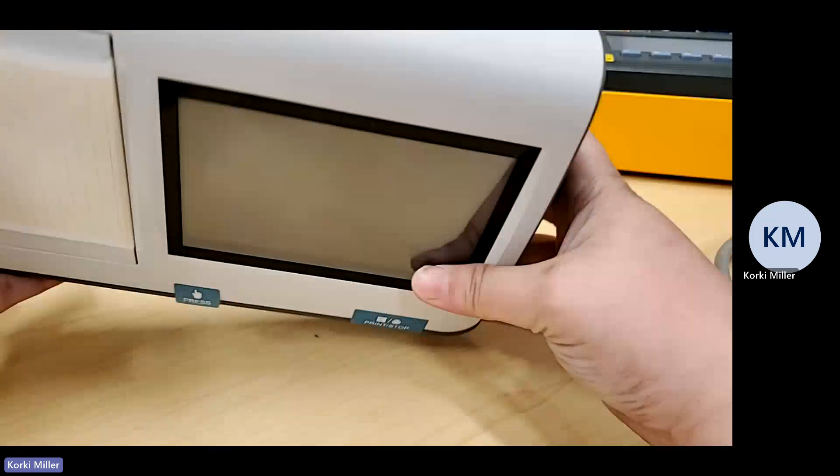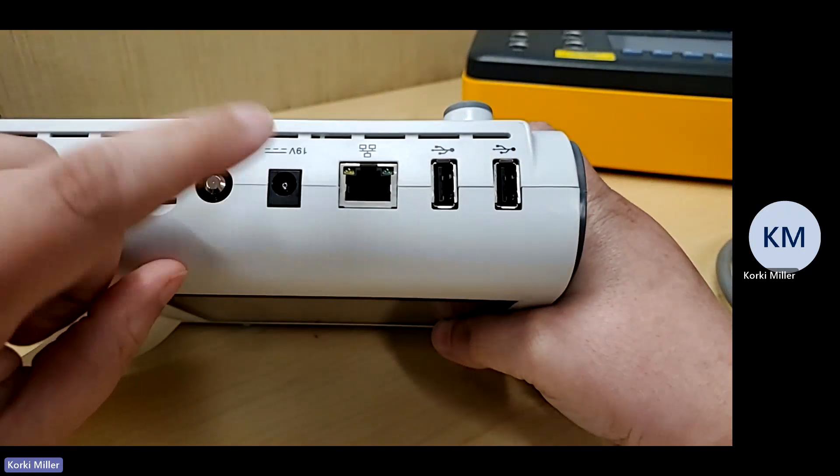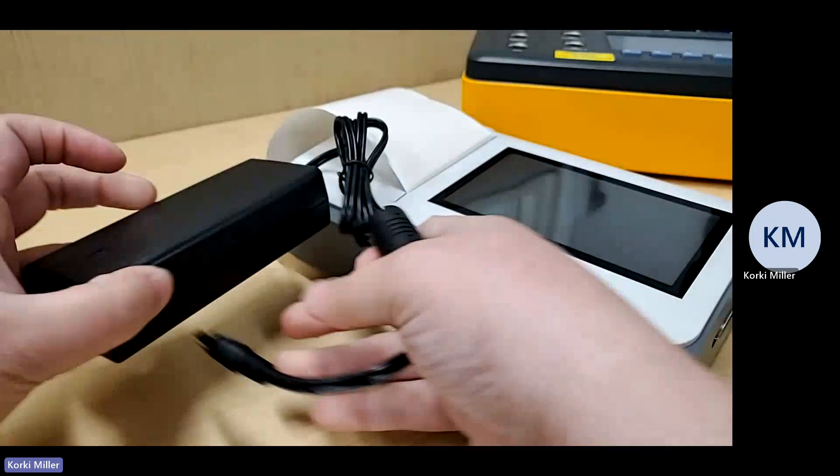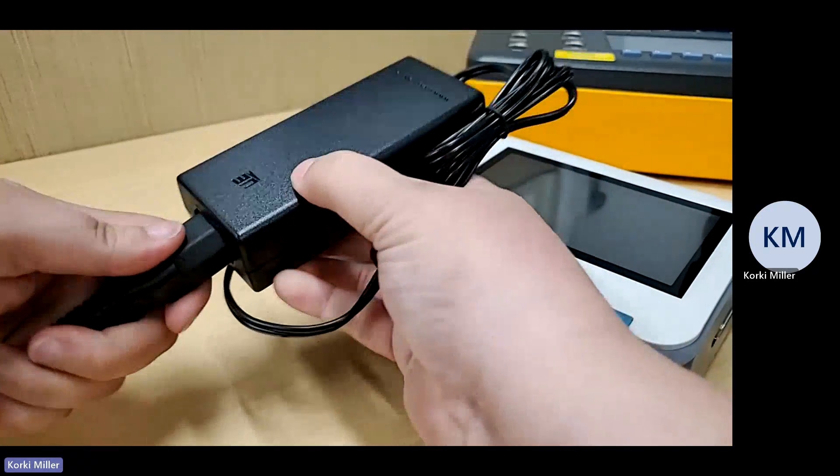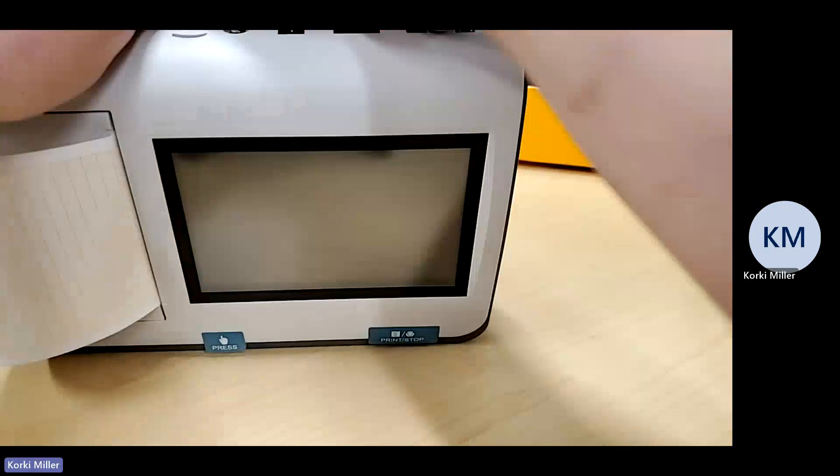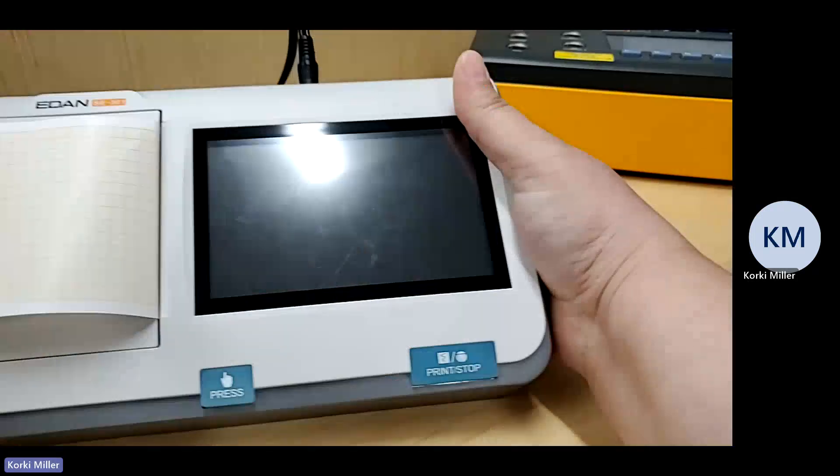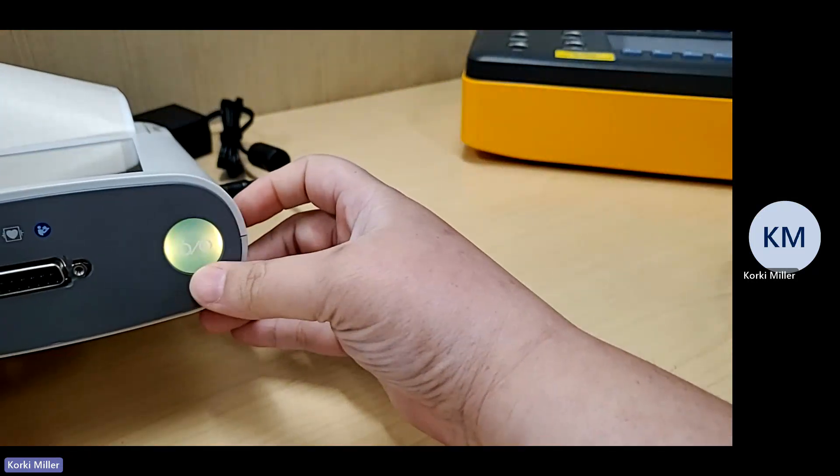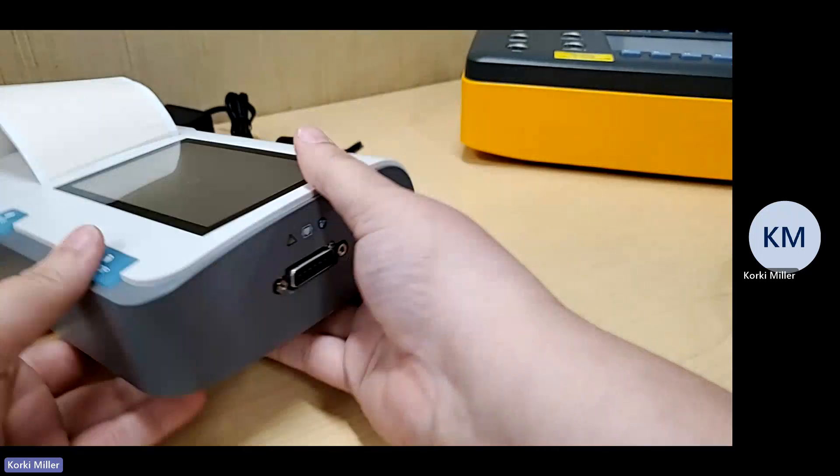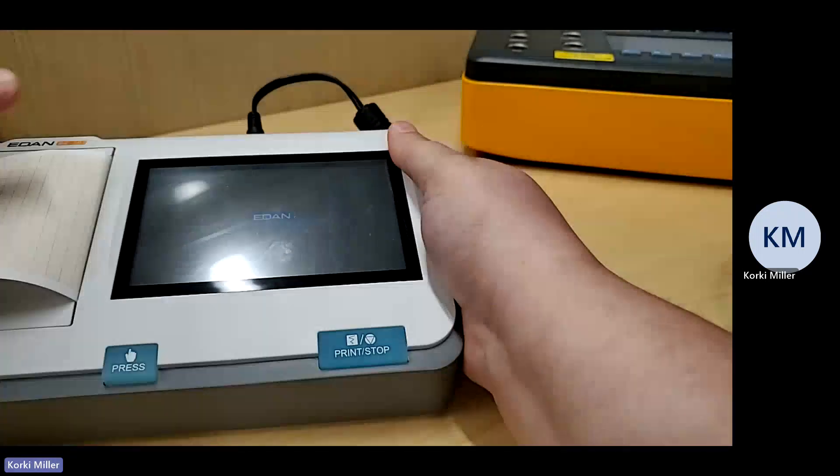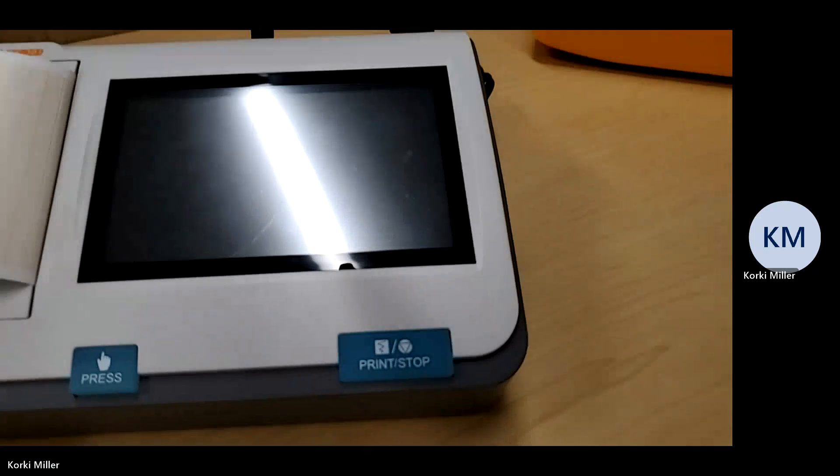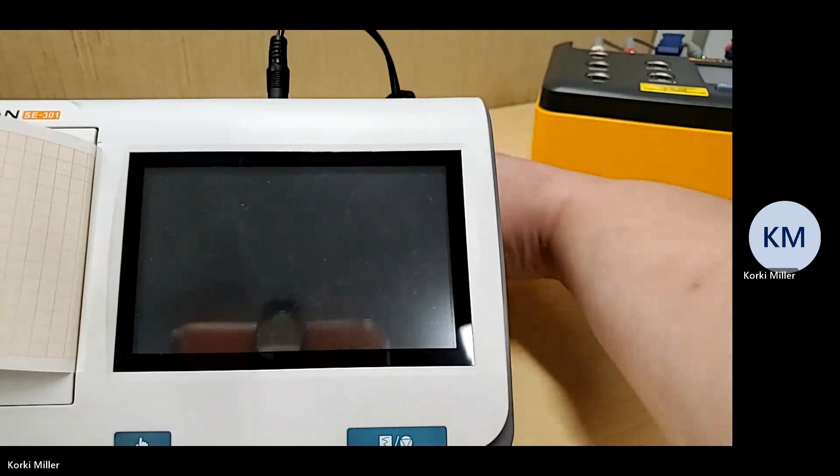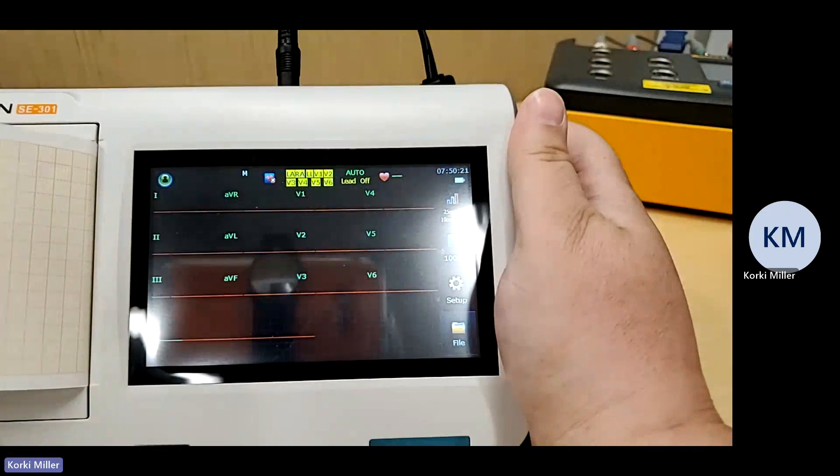Top part of the unit. And this charger port cable here. We're going to use this to power the unit. So we have an adapter. Comes like so. And it plugs into a normal hospital grade power cord. Plugs in here. And this goes here. You plug it in. These lights mean different things. This means that the battery is charging. I'm going to push it to turn on the unit. You can see the wheel spinning. So it is turning on.